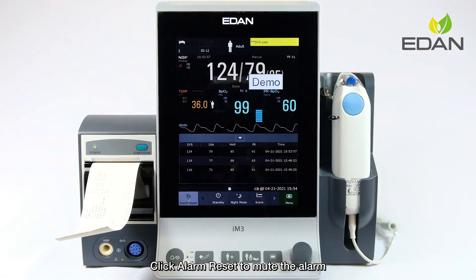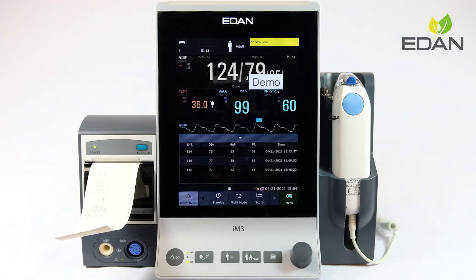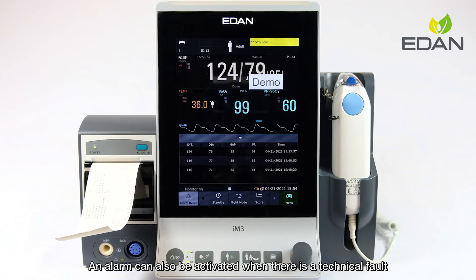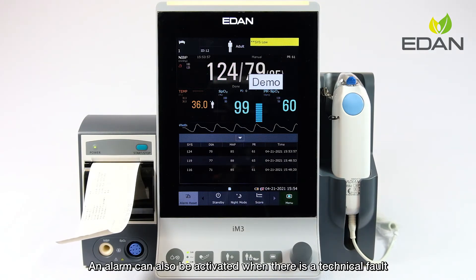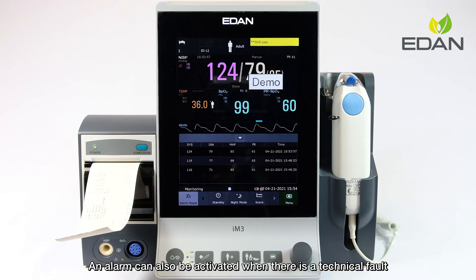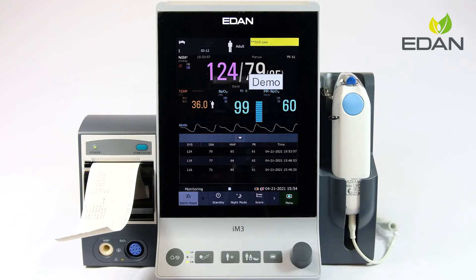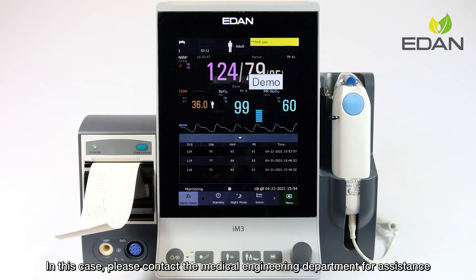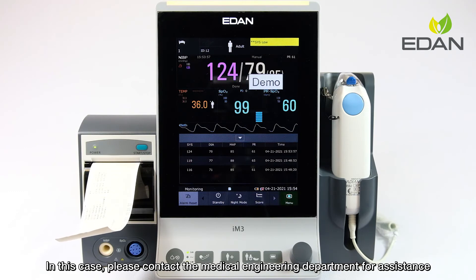Click alarm reset to mute the alarm. An alarm can also be activated when there is a technical fault. In this case, please contact the medical engineering department for assistance.